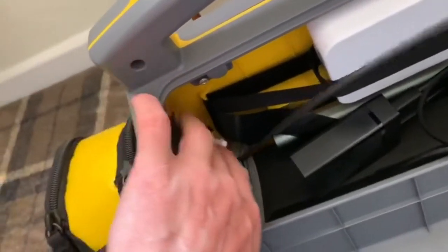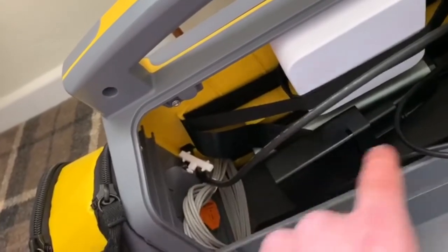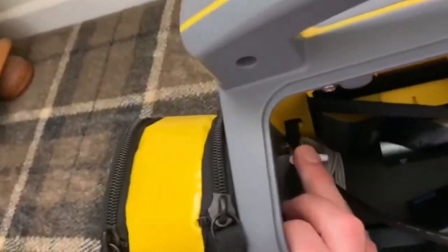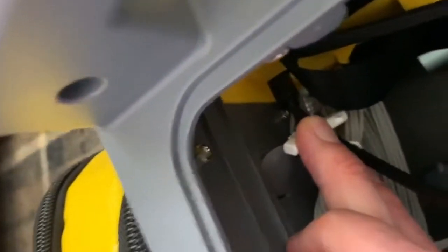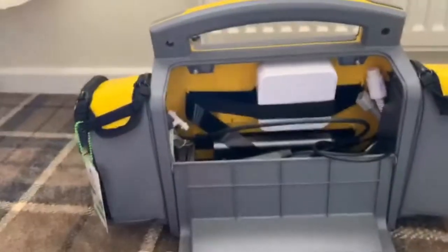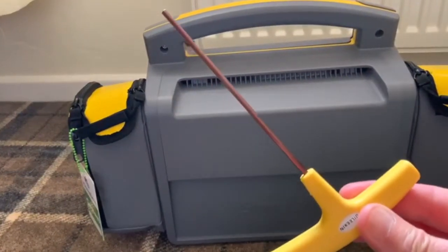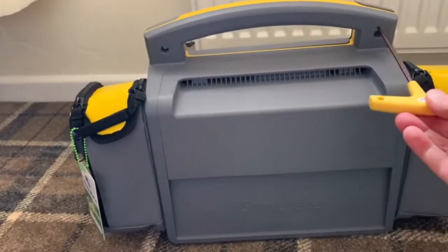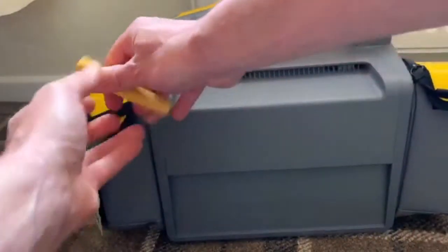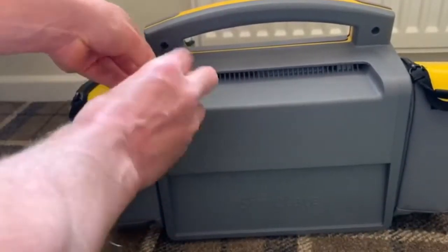This lead comes out of the hub which is powered by the battery at the back. Behind that T-piece from the BP cuff, it goes out there — so where does it go? The Allen key T-piece fits into the back here and unscrews. We'll just take this one out. It spins out quite easily, and what happens is the case comes away from the front.